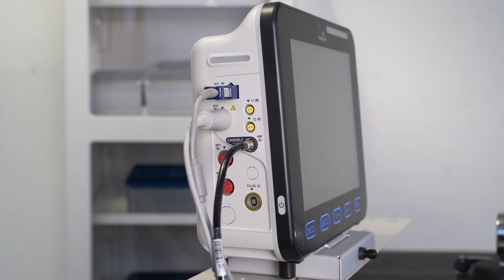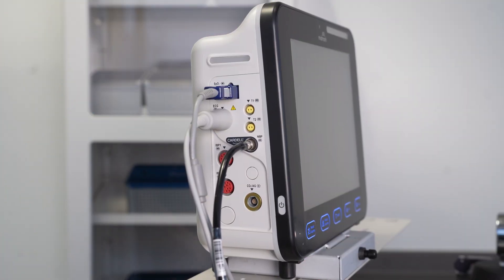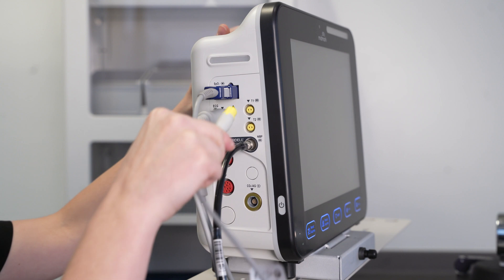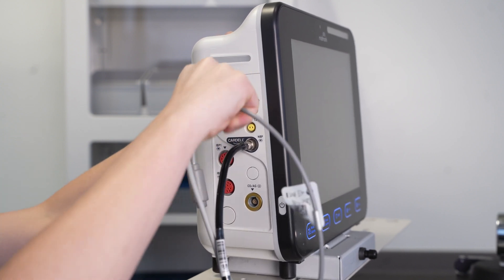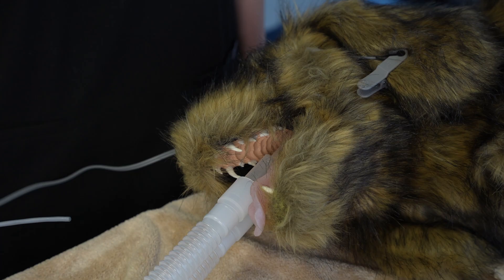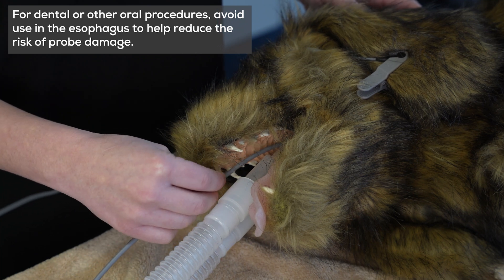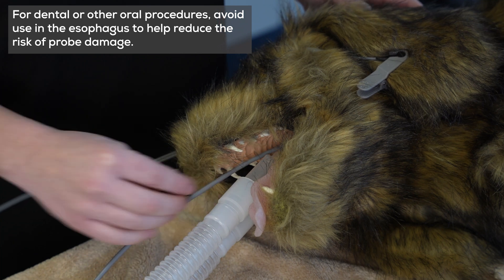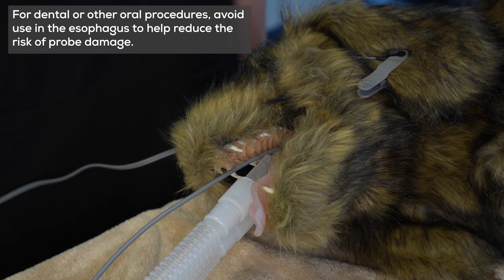To set up temperature, plug the temperature probe into either the TEMP1 or TEMP2 port on the side of the monitor. The temperature probe may be used in the patient's esophagus or rectum.